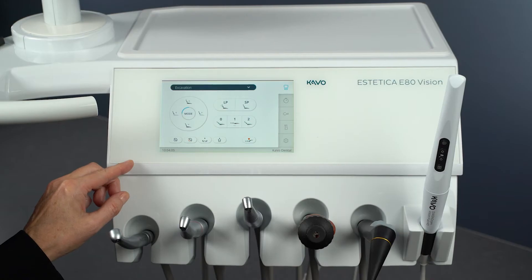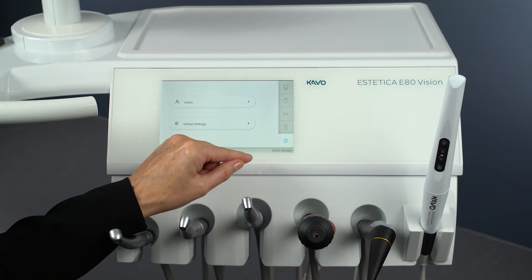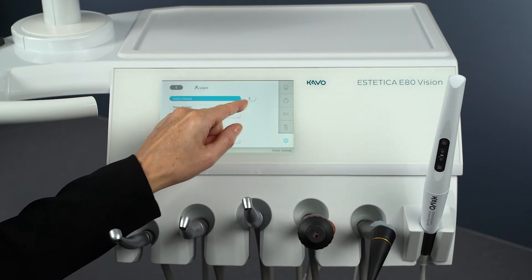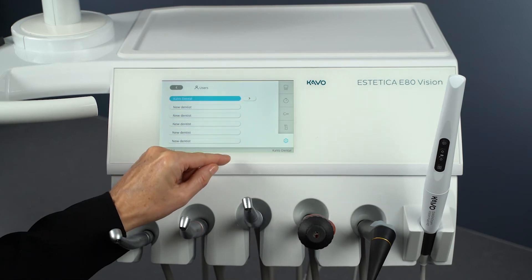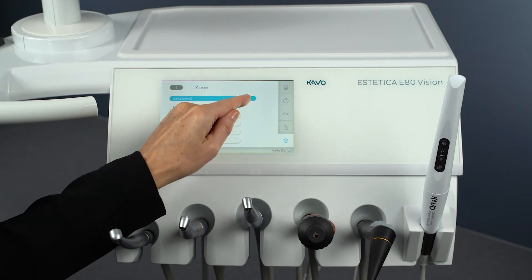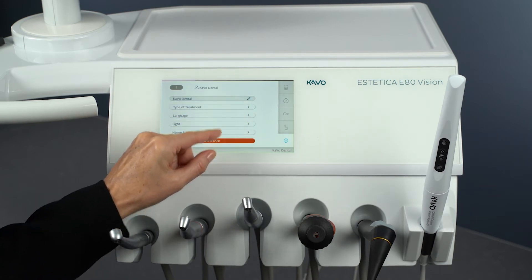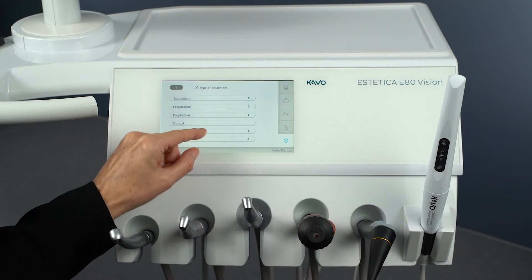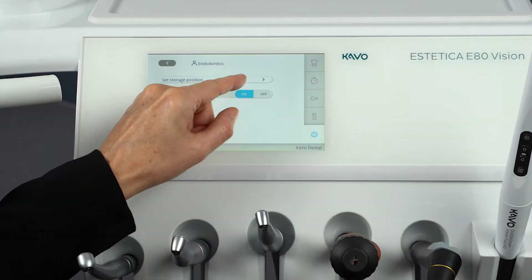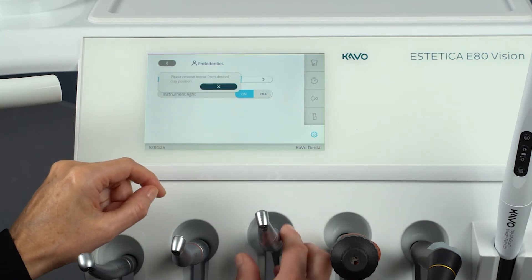You can define the placement position of the Endo motor in the Settings tab. To do this, tap Settings, then the User button and call up the settings for the desired practitioner. Select the treatment type Endodontics and open the menu Set Placement Position.